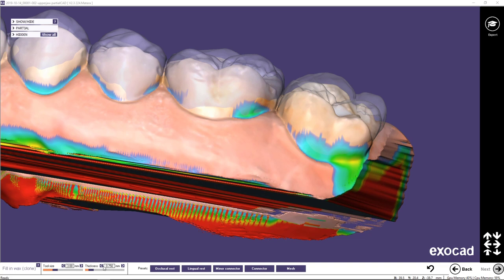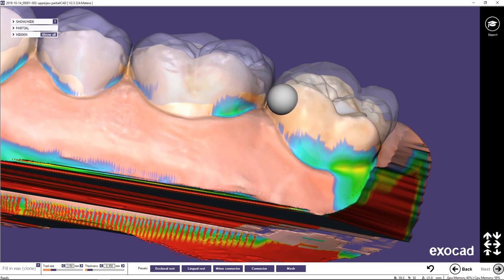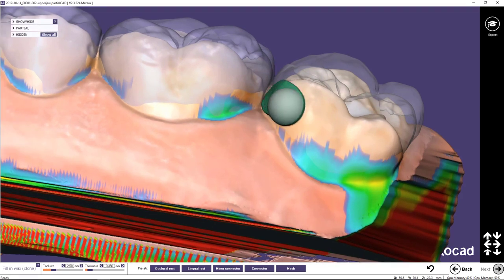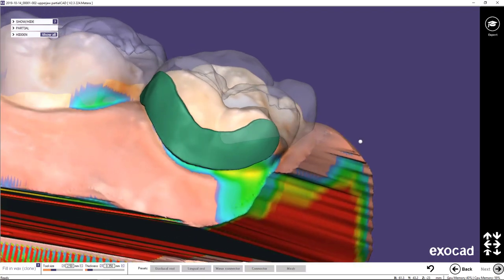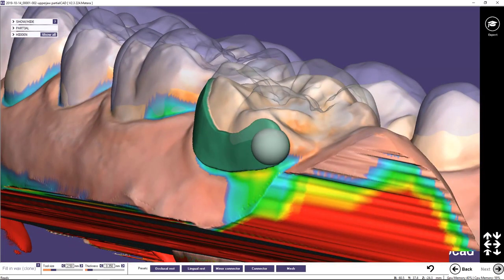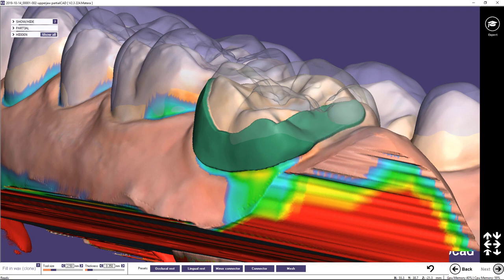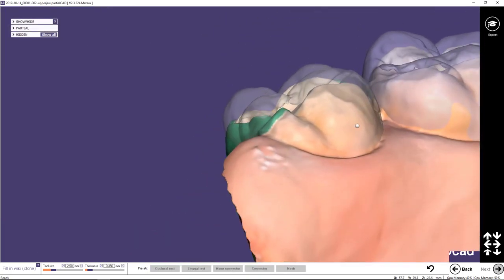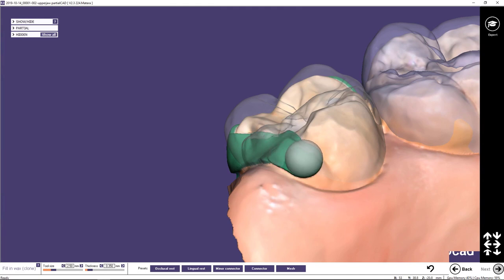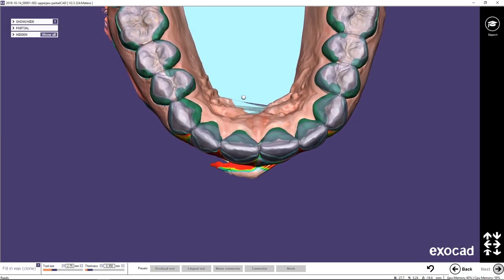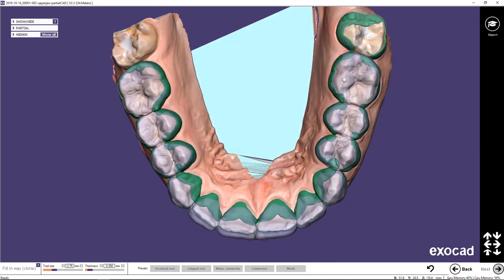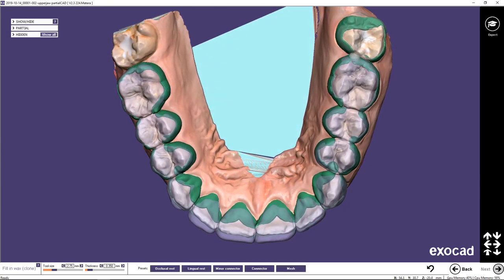In this step I can do several things to improve the design and achieve exactly what I want. First off I'm selecting a thickness which correlates to the desired minimum thickness of the material I'm using. For demonstration I draw a finish line around all of my teeth, which gives me a set minimum thickness in the areas where the snap-on effect comes into play. Depending on your material, production methods, and the strength of your undercuts, this might not even be a necessary step. You can also use this tool to apply connectors between the teeth — even though we set up connectors earlier in dental CAD, those might not follow the tooth shape, but these ones will. For this I just draw on the approximate contact points on all of the teeth.